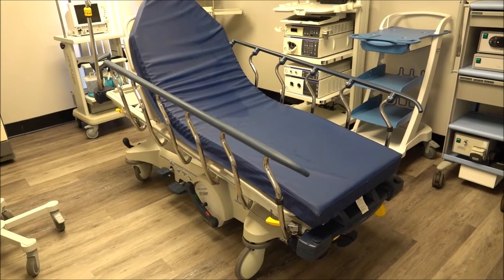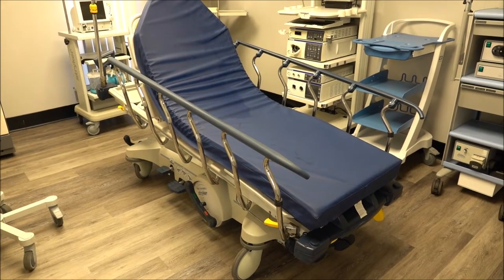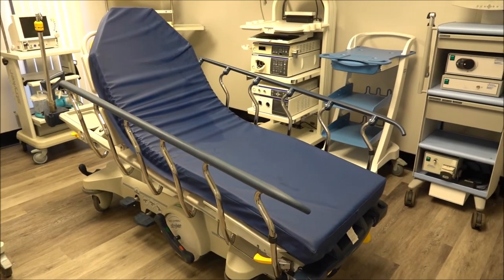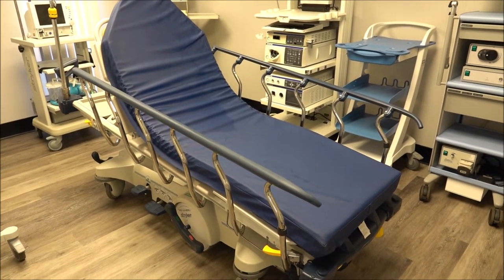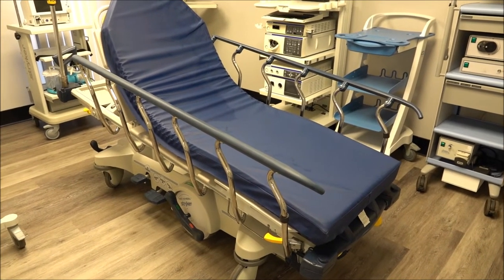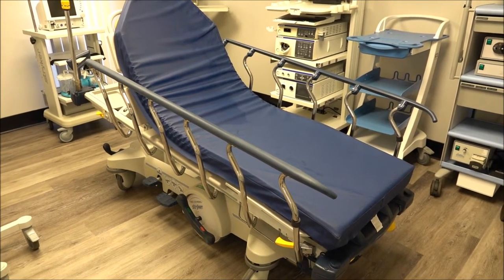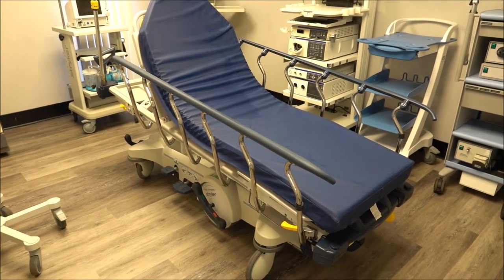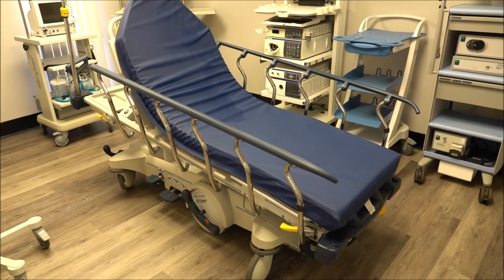These are also referred to as Stryker M-Series stretchers. You do have a 1025, which would have a zoom drive feature that allows you to push it down the hall automatically. But the 1015 and the 1005 are by far the most popular ones we sell.